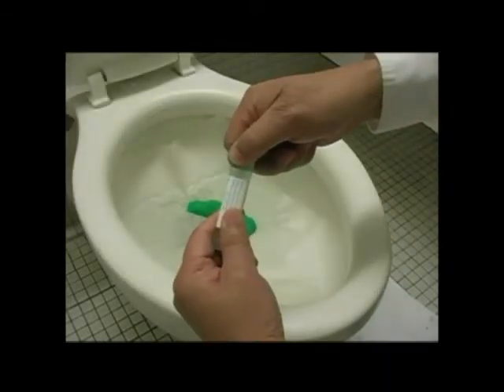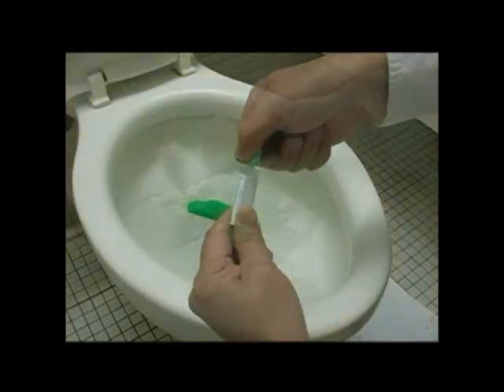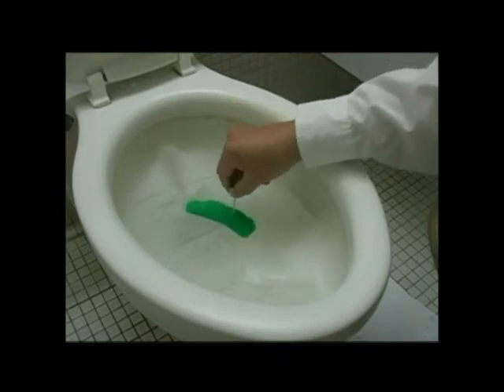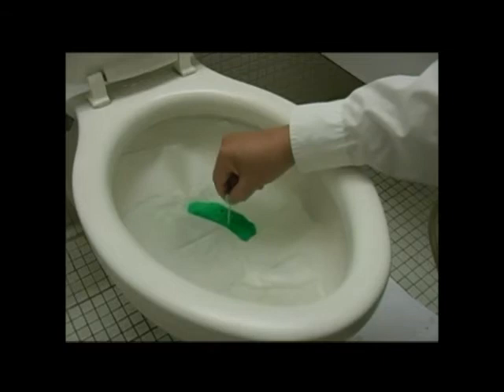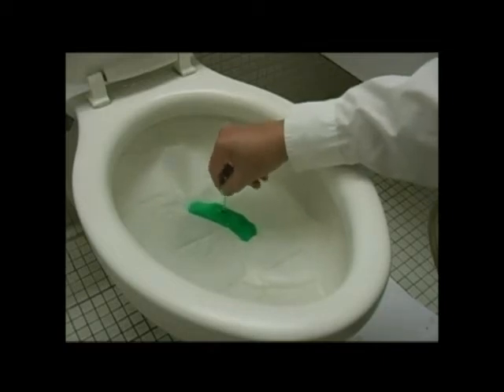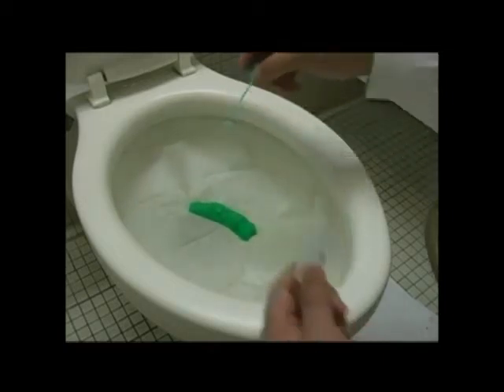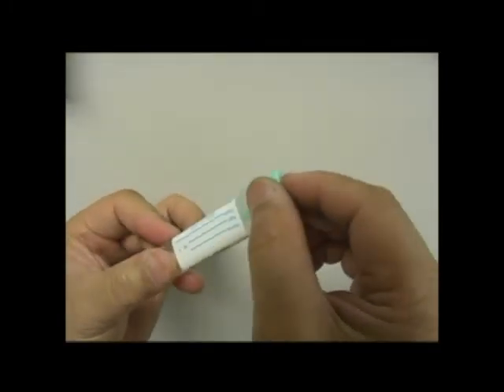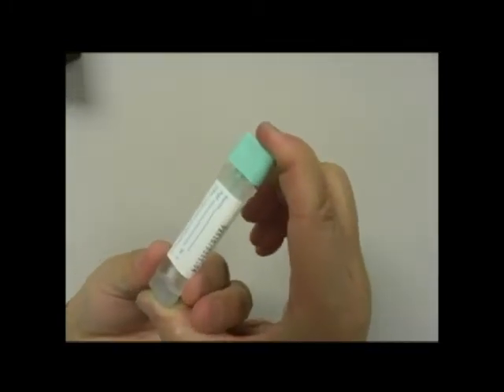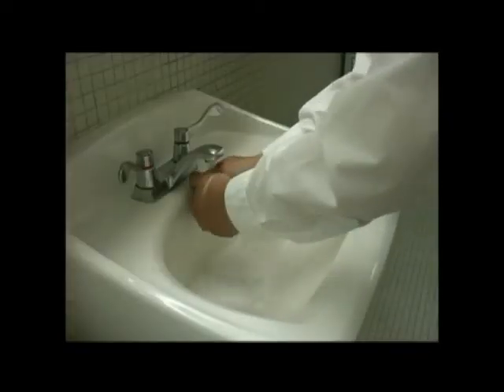You can have your bowel movement and let the stool drop on top of the paper. You then take the plastic bottle, twist the cap off, and use the tip of the stick to poke into the stool several times in different places so that the tip is covered with the stool sample. Insert the stick back into the bottle. Snap shut the cap tightly. Now you are done, flush the toilet and be sure to wash your hands with soap.